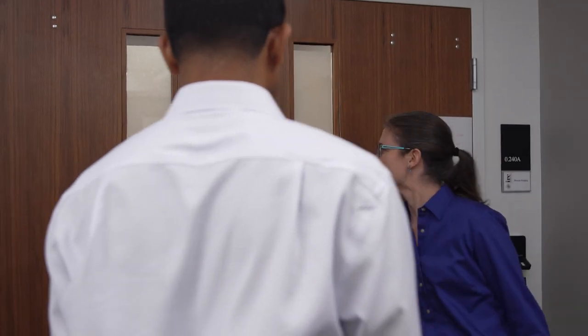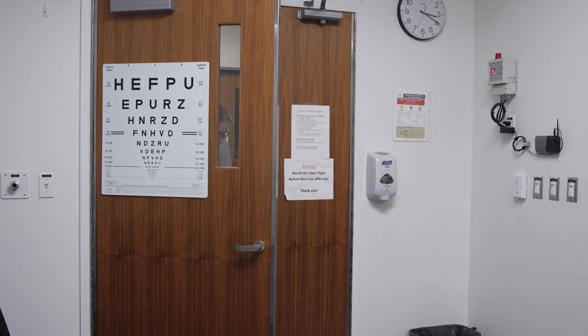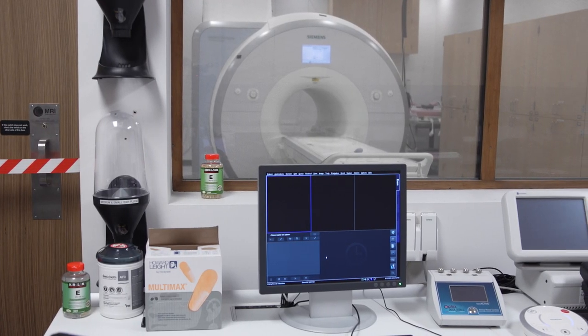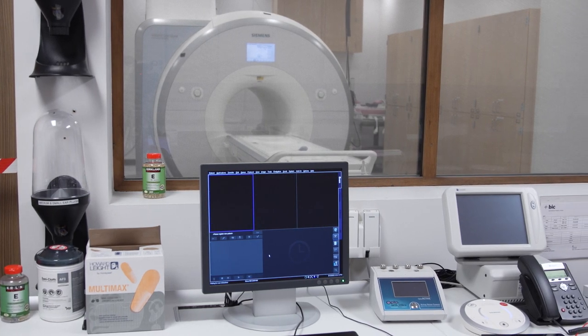This is Dr. Julie DiCarlo, who is an MRI staff scientist here. Julie, how do you describe an MRI machine very broadly?